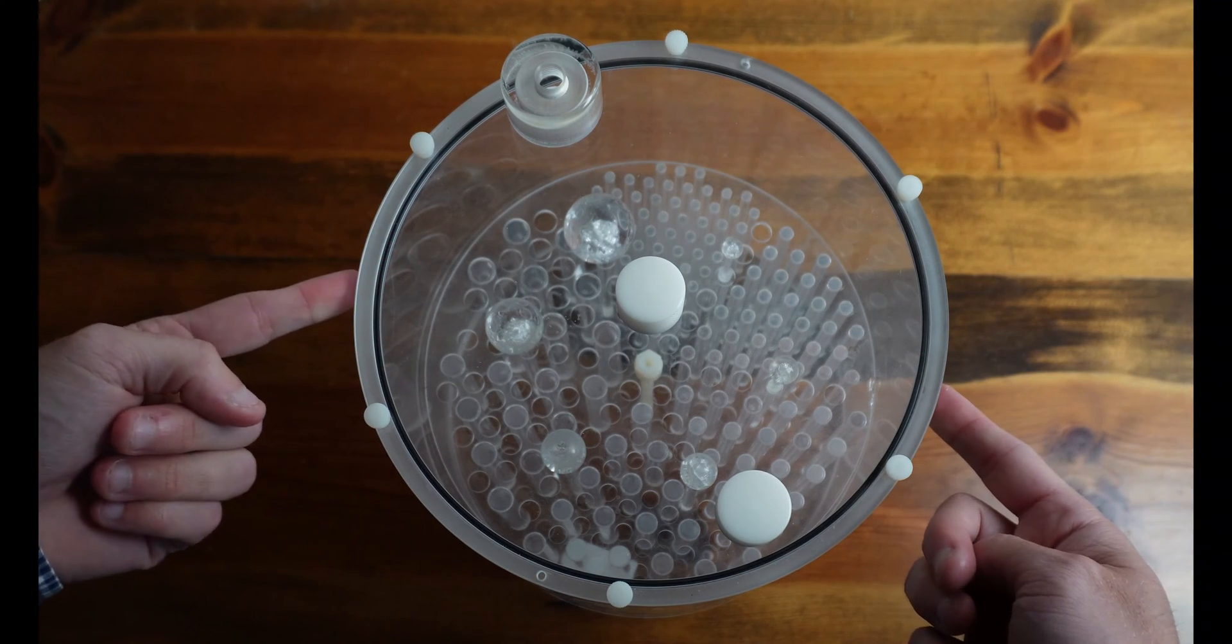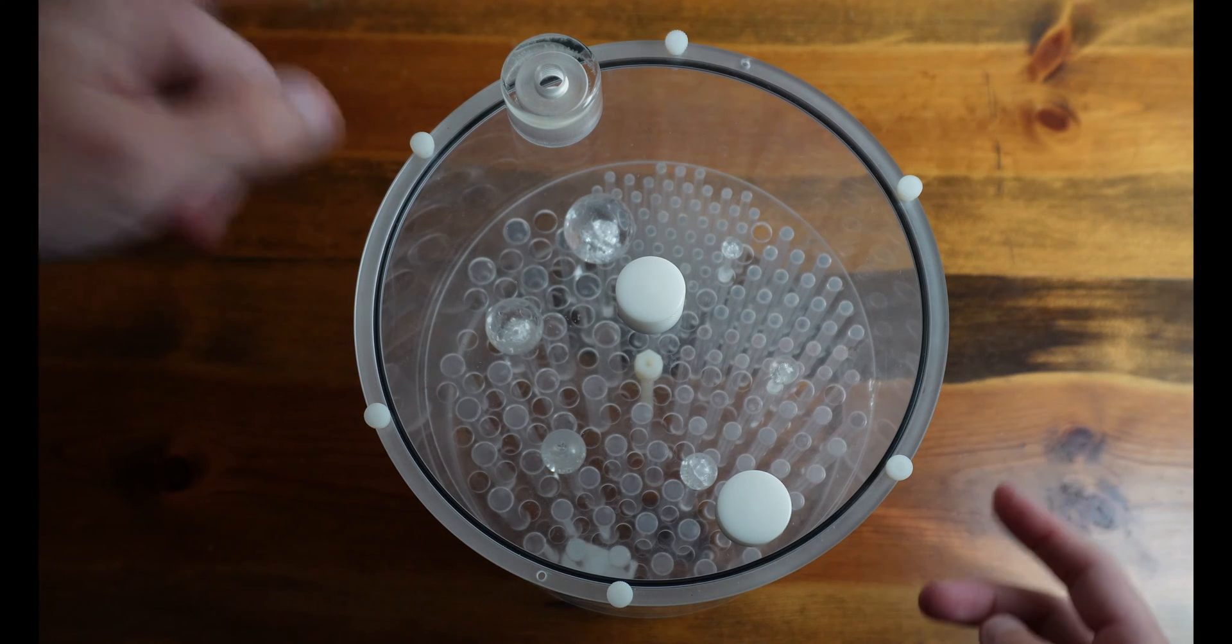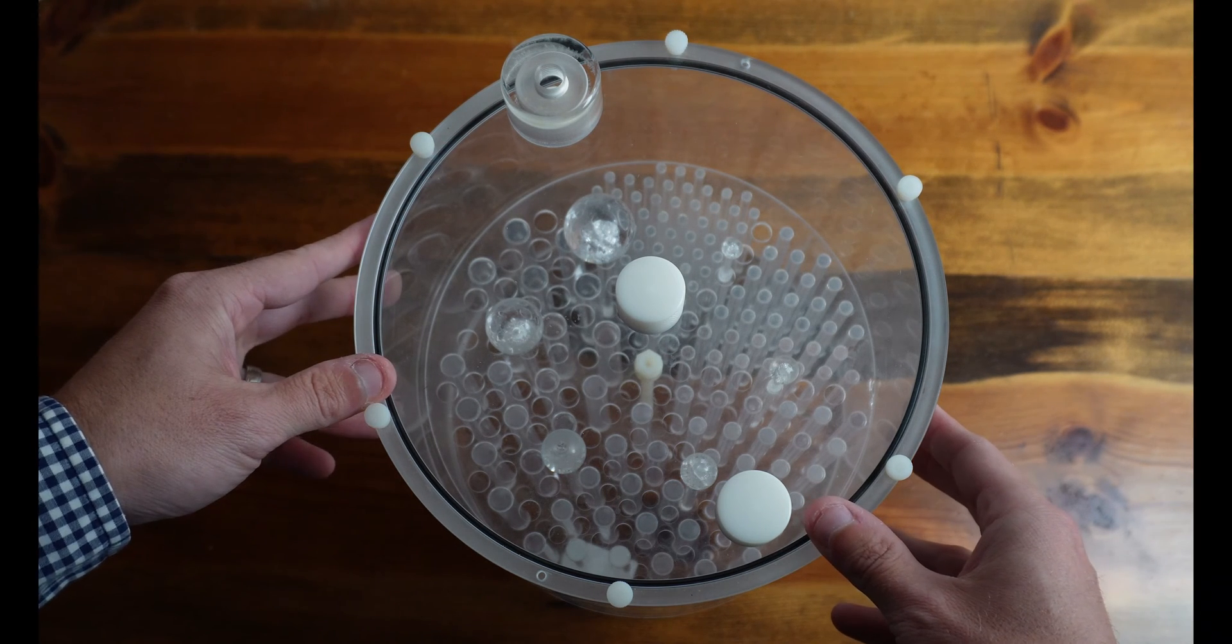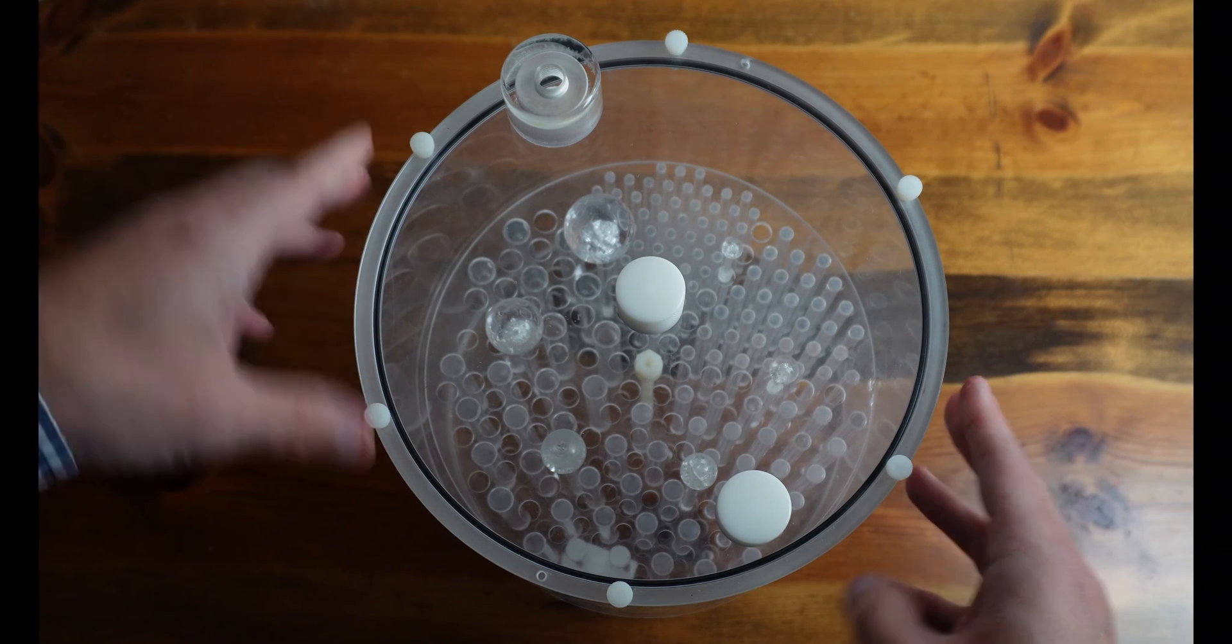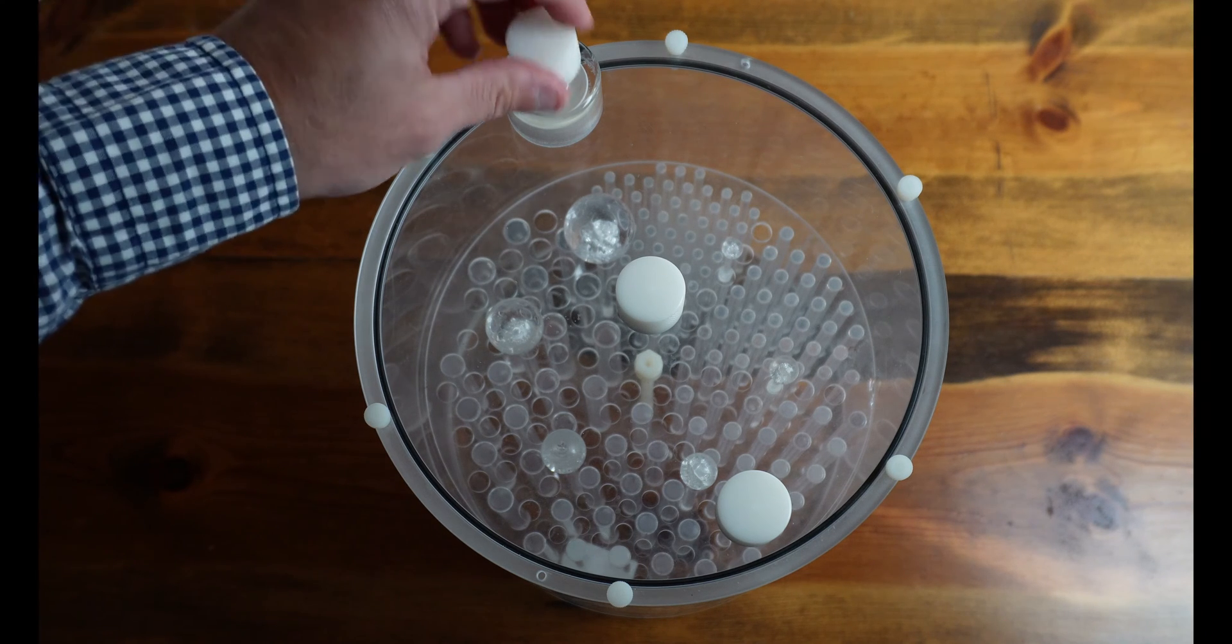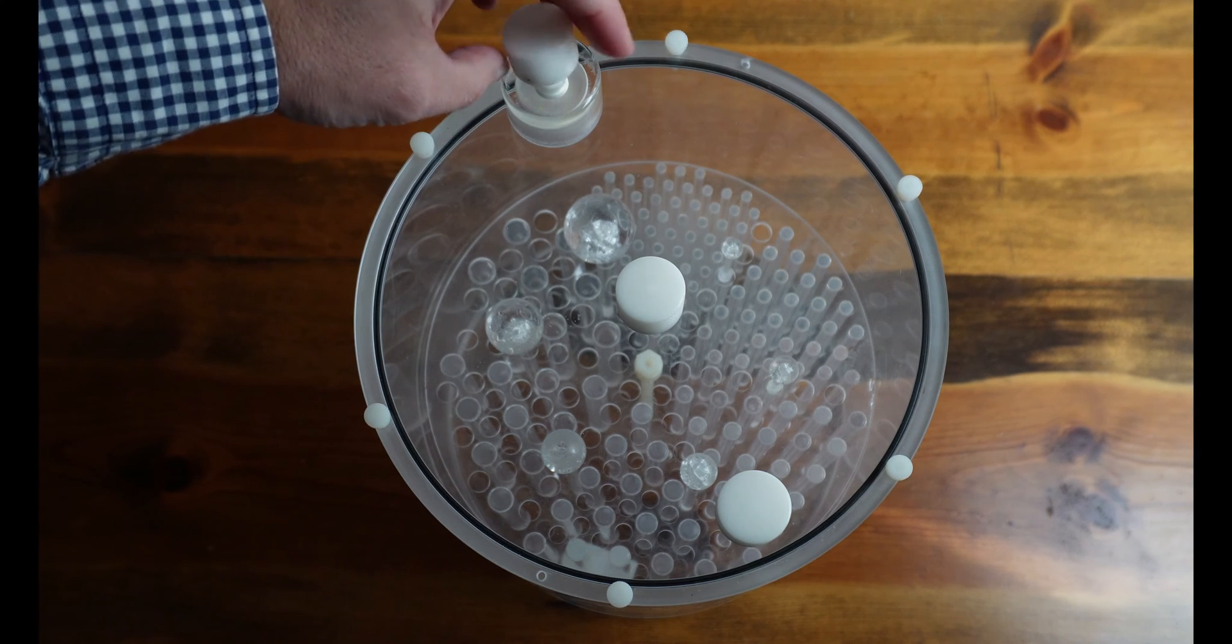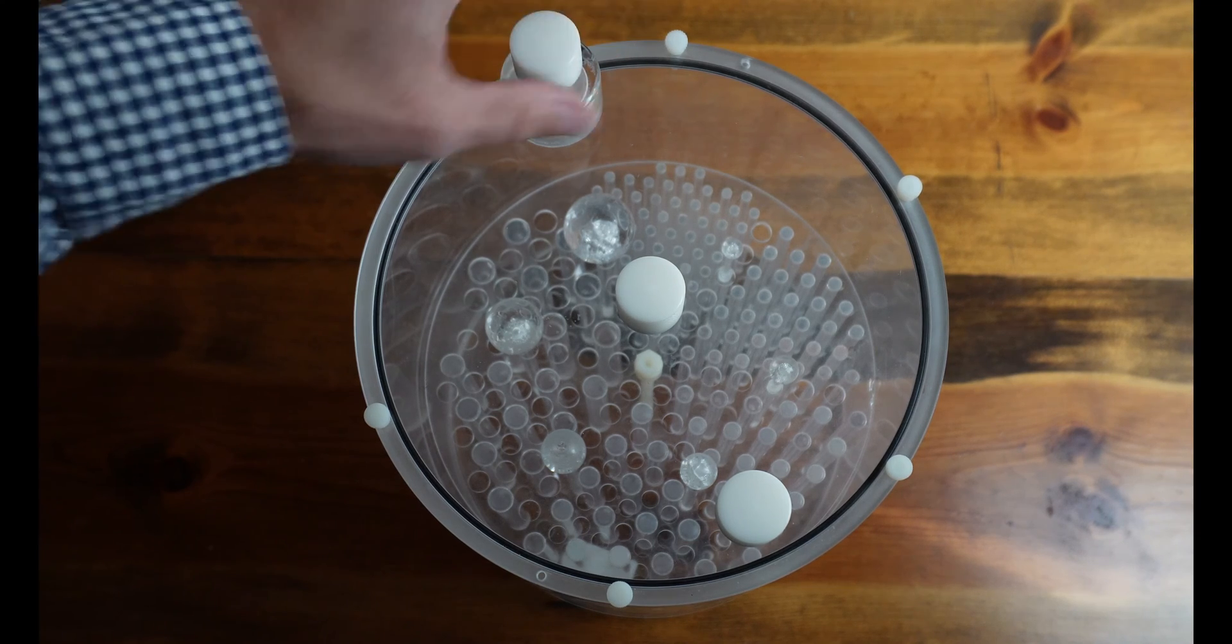After we have the lid on, we have it filled up mostly with water. We can go ahead and add our technetium in here if we're using technetium to do our quality control. So we can add our technetium here and give it a good mix. Whenever I mix it, I go ahead and put the fill port screw in.